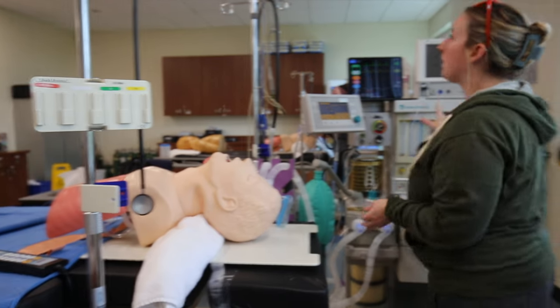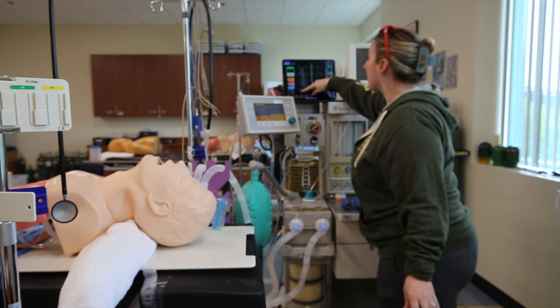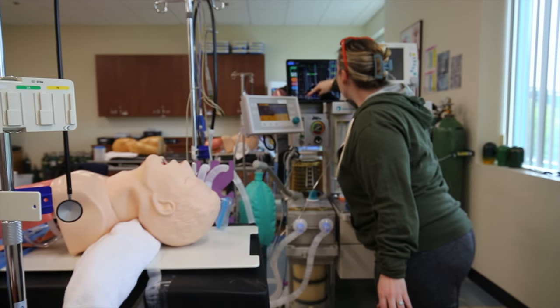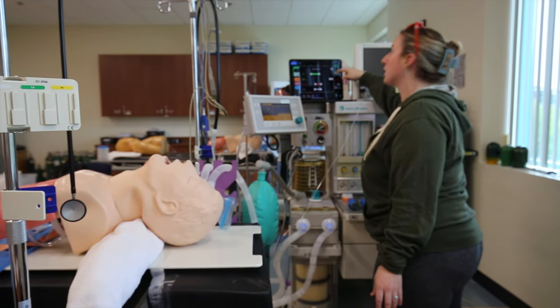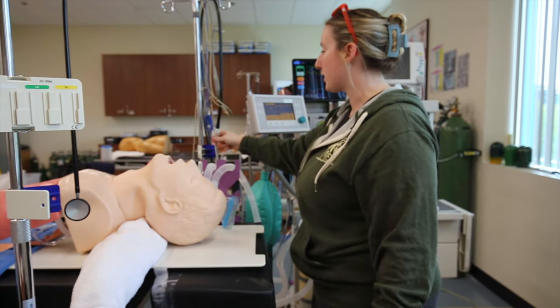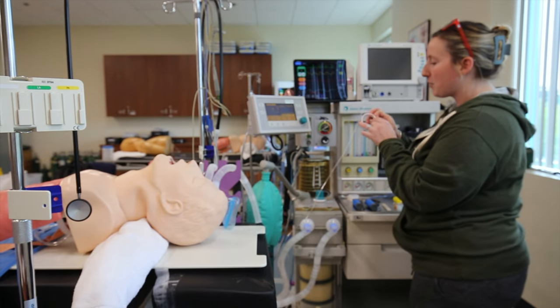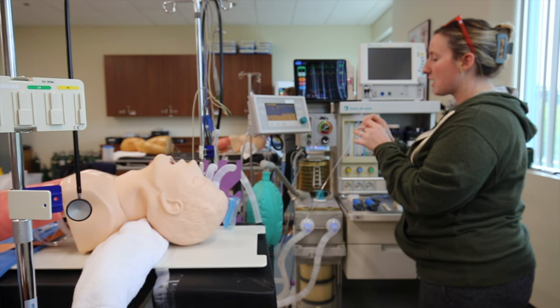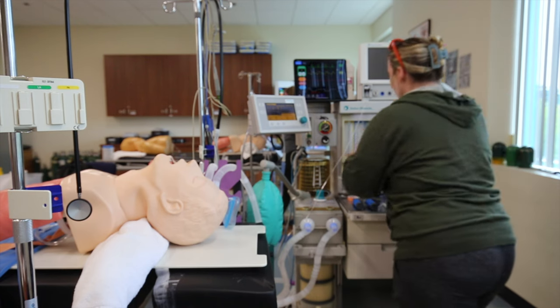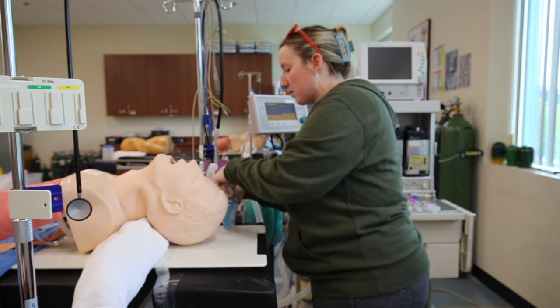So that's my machine. For monitors — my monitors are on, I'm setting parameters and setting alarms, and those all look good. I have my EKG leads, I have my pulse ox, and I have a blood pressure cuff. For tape, I have my ETT tape, and tape for the eyes as well. I'm putting two pieces on the mask so I don't forget.